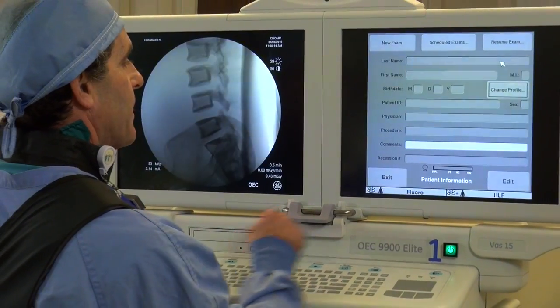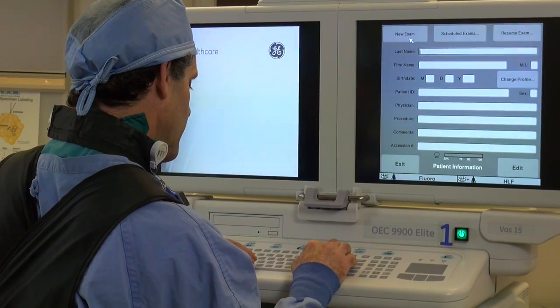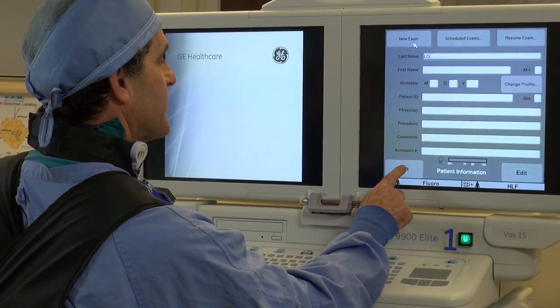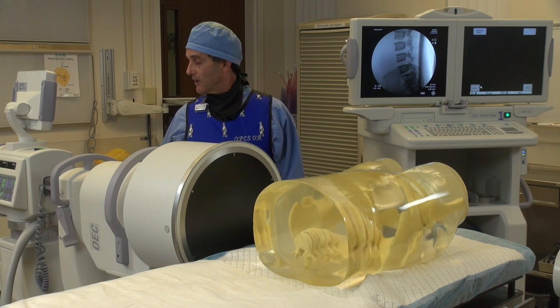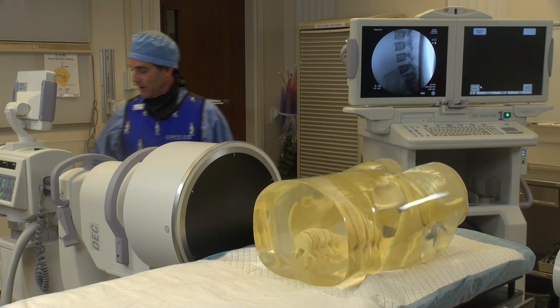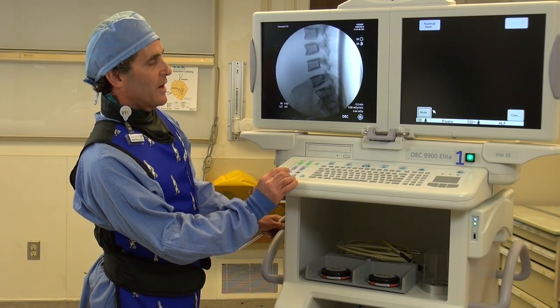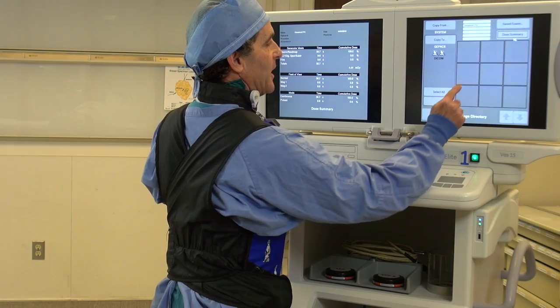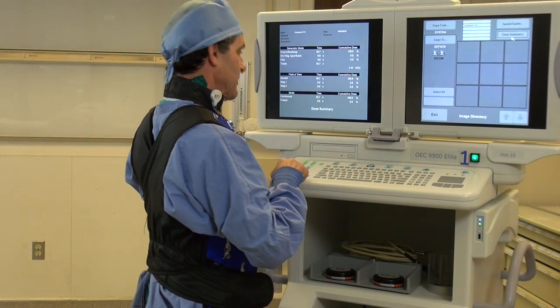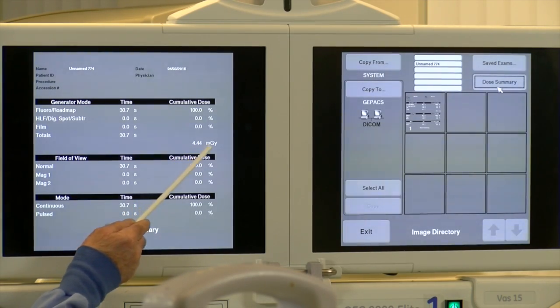Now we're going to start this whole thing over again. We'll go to new exam, and this time I'll remember to put in a name — I'll just say LD for low-dose. And we're exiting out. So now we're going to make the 30-second exposure with the low-dose setting. Getting it all ready on low-dose, getting my timer reset and started. What we're looking at right now is 4.44 milligray. I'll go to the image directory, go to my dose summary page, get a dose summary there, and save that. So this one on the low-dose was 4.44 milligray.